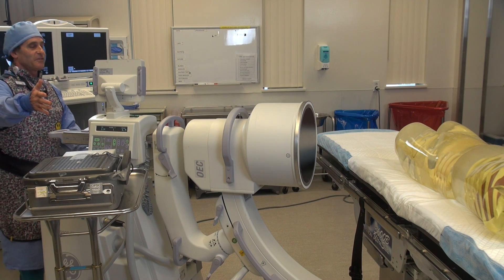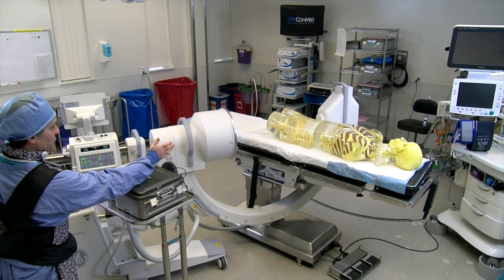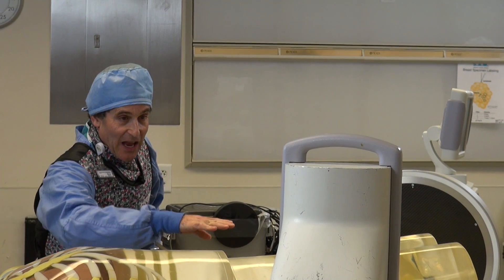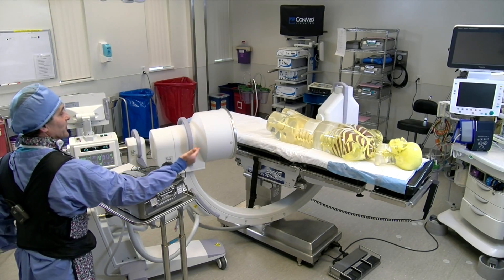We did it at two feet, and this one is exactly at 90 degrees to the patient. The ion chamber is exactly the same height as the hip, exactly in line with the hip, and from the middle of the patient to here is exactly four feet.